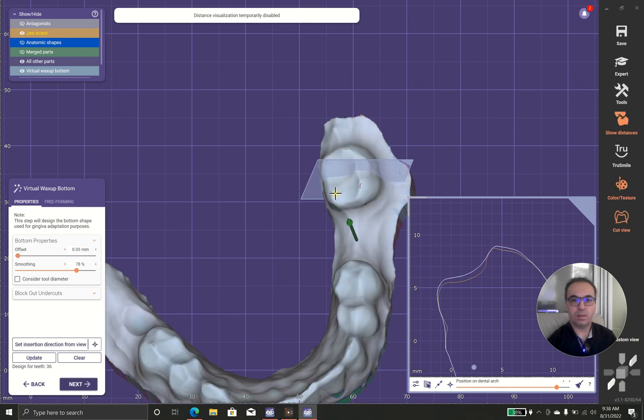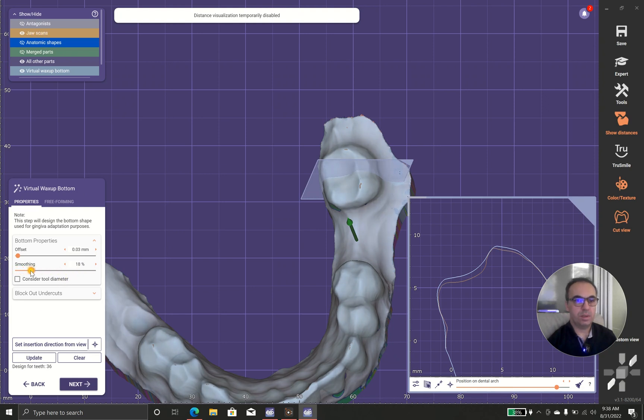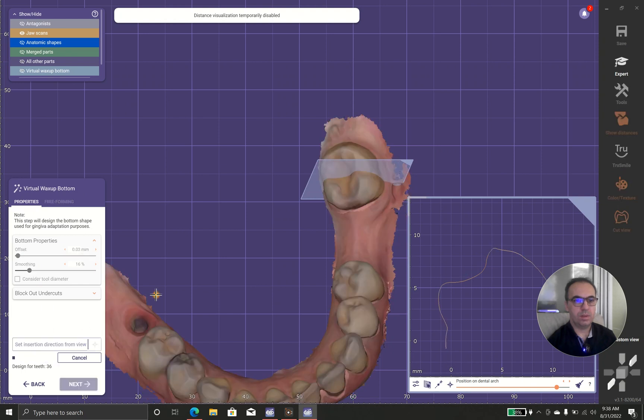Okay, look, everything looks soft and you don't have the proper contours, so I'm going with the default.